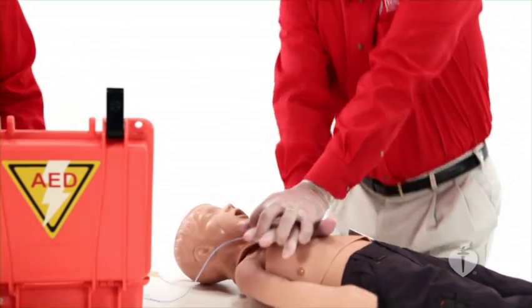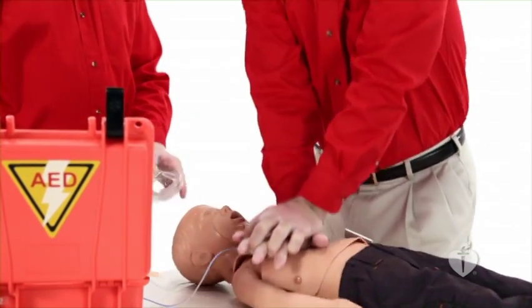1, 2, 3. Shock delivered. Begin CPR. Start with compressions.